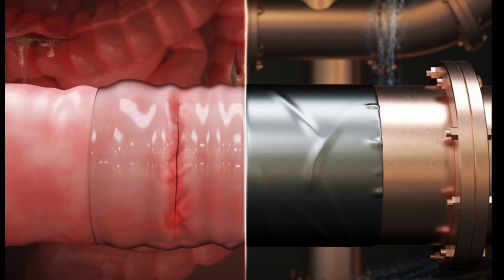To solve this problem, the researchers pre-stretched the adhesive layer a bit, then introduced the non-hydrogel top layer, so that when applied to a tissue, that pre-stretching cancels out the swelling.